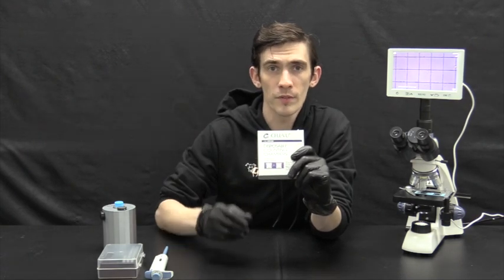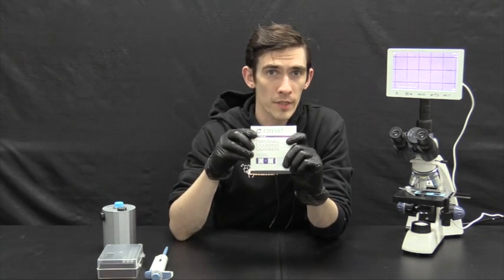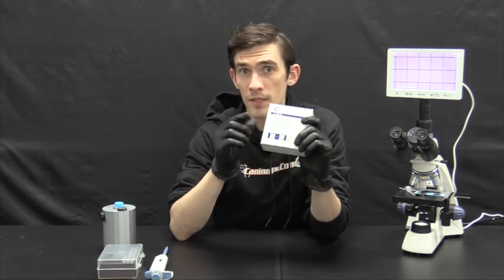Sperm quality is a super important tool in the world of dog breeding. Don't count it out, get yourself a count.